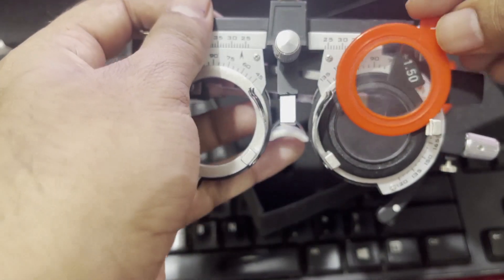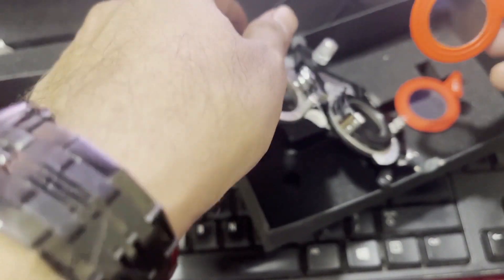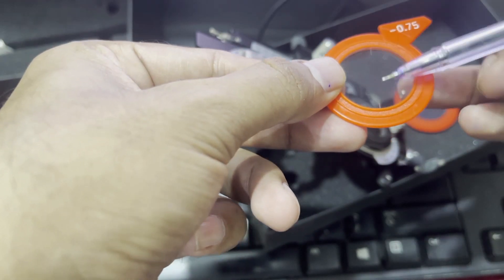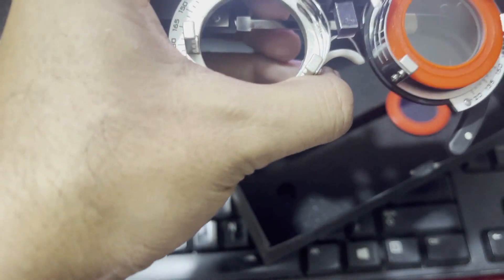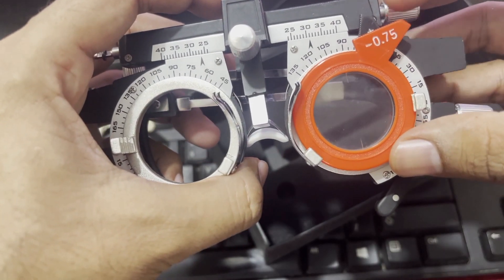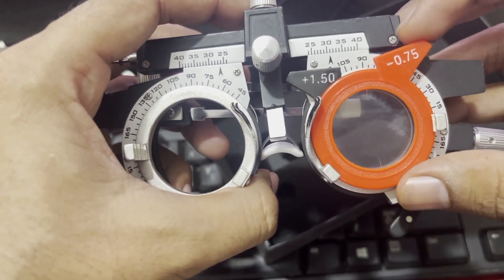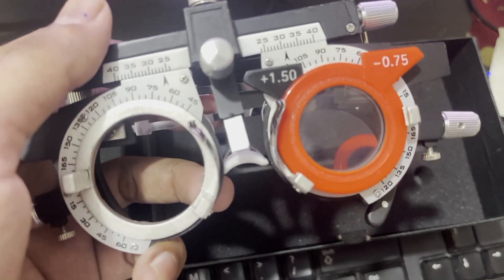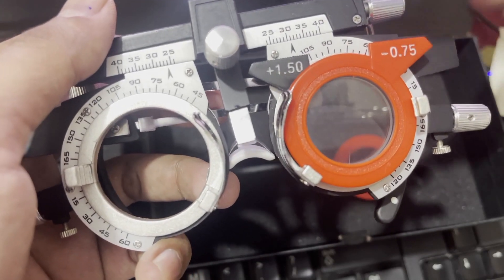We adjust the cylindrical lens in the second compartment. You can visibly see the axis line in the cylindrical lens. We adjust the cylindrical lens in the trial frame according to the axis — for example, if the axis is 90 degrees. So the spherical lens at plus 1.5 goes in the first compartment and the cylindrical lens at 90 degrees goes in the second compartment.